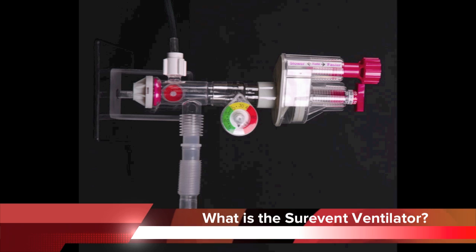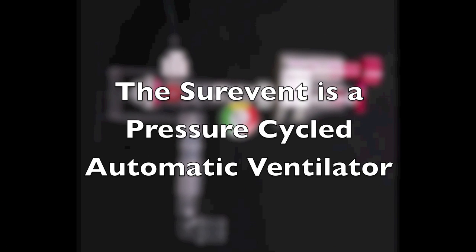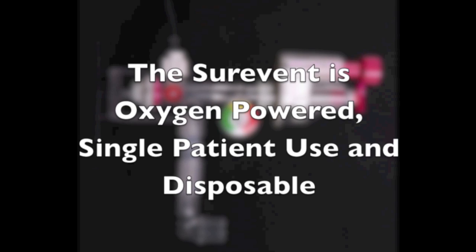This is the Surevent Ventilator. The Surevent Ventilator is a pressure-cycled automatic pre-hospital transport ventilator. The Surevent Ventilator is oxygen-powered, single-patient use, and disposable.